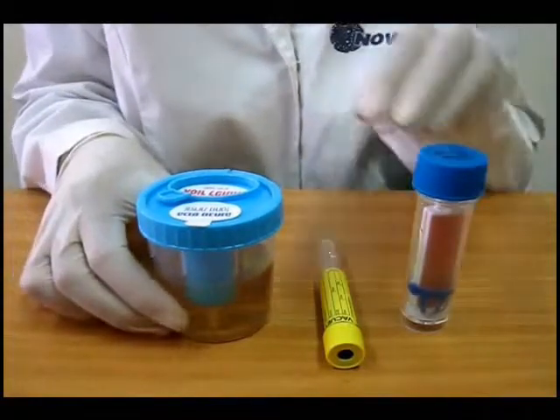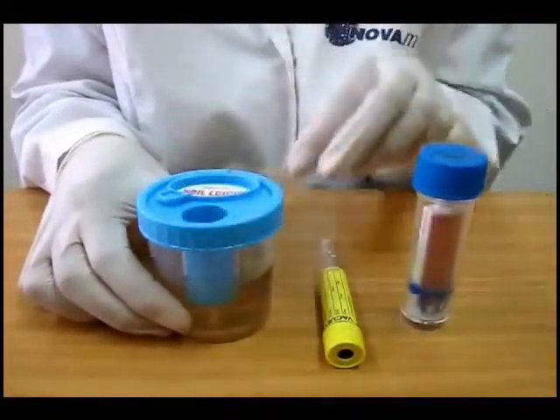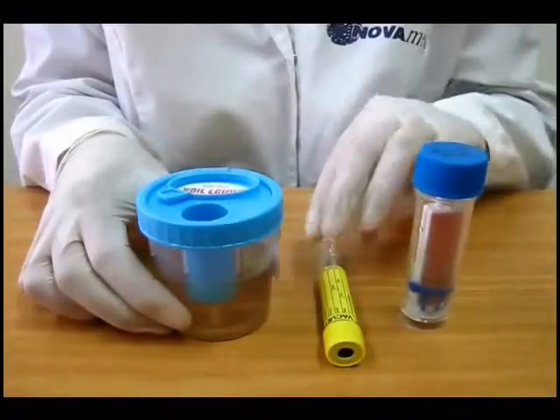Set the urine container containing the specimen upright on a clean flat surface. Remove the blue sticker from the main cap.